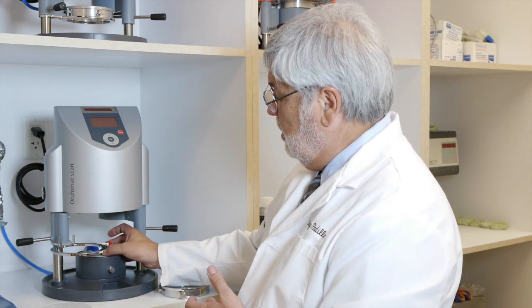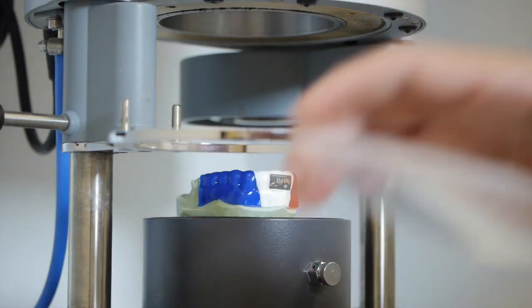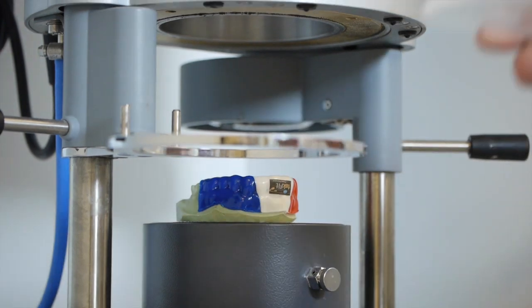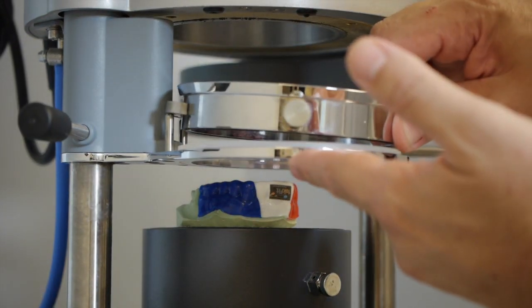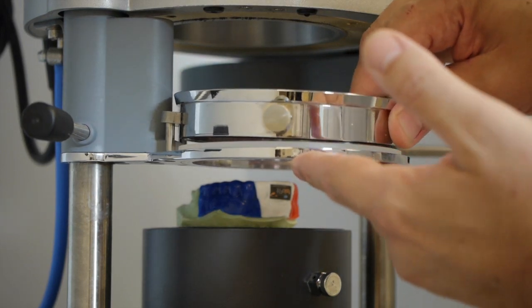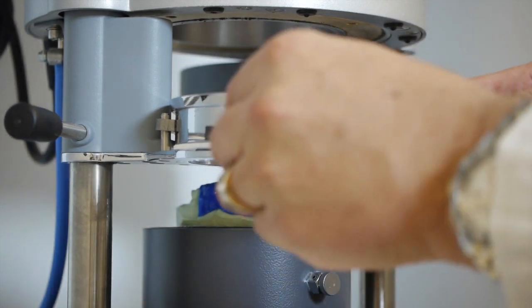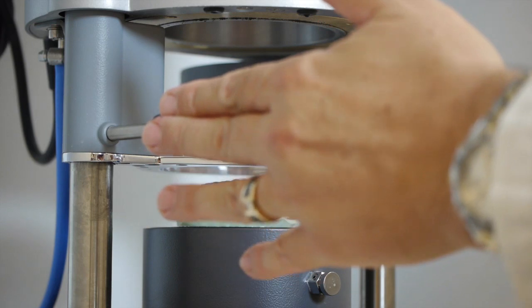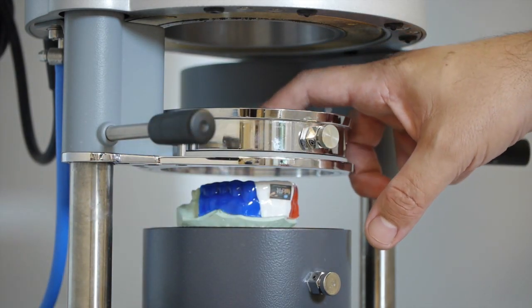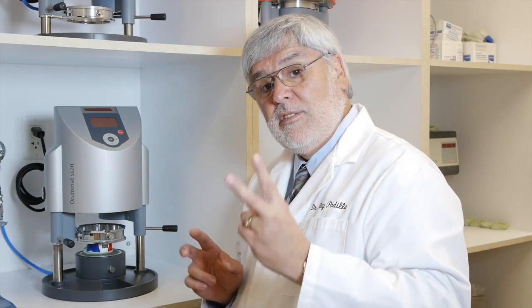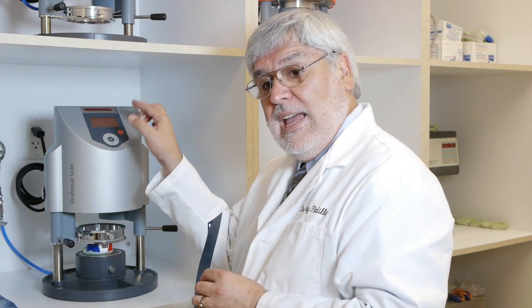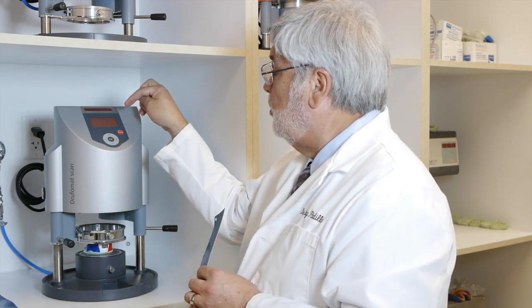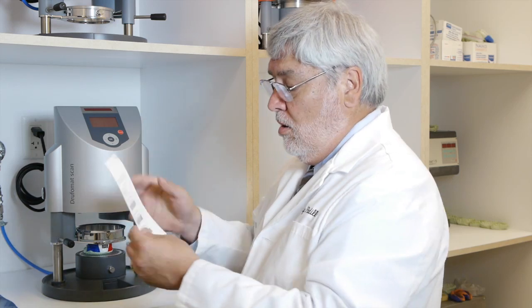Place the model on the tray. Here's our second layer of clear three millimeters. Place that on the ring, line up our ring in the pegs. Set that material over the model, and now we're ready for our second scan. Now there's two ways of getting the second layer scanned: one, you can pre-program it in the machine, or you can just scan second layer. Either way works.